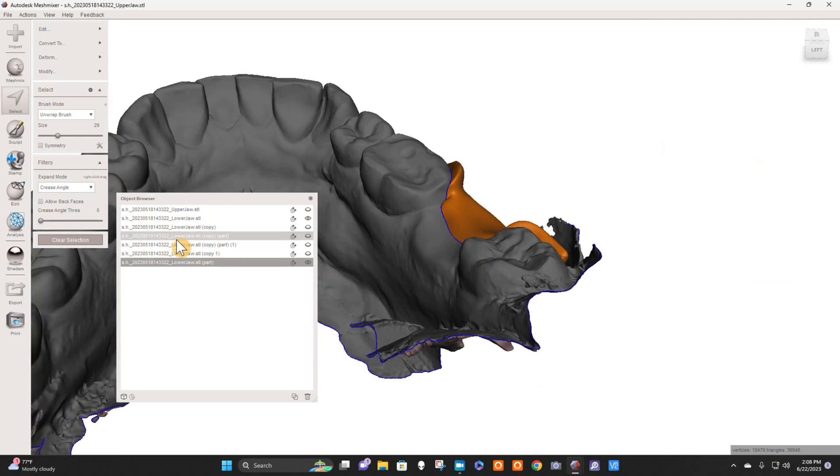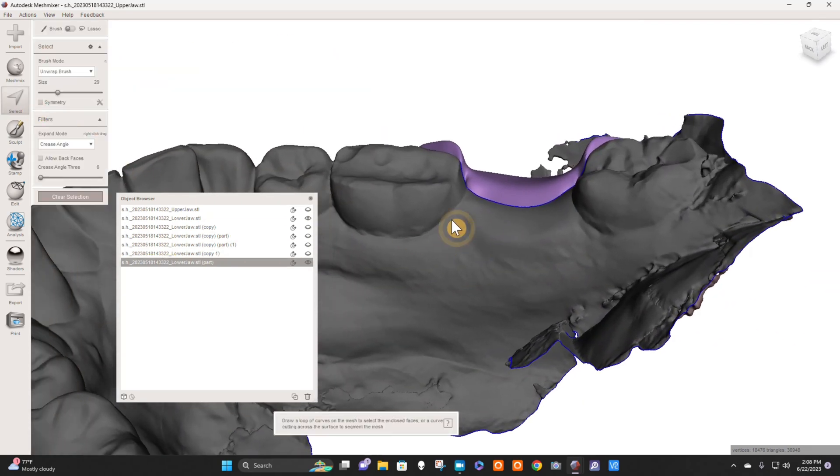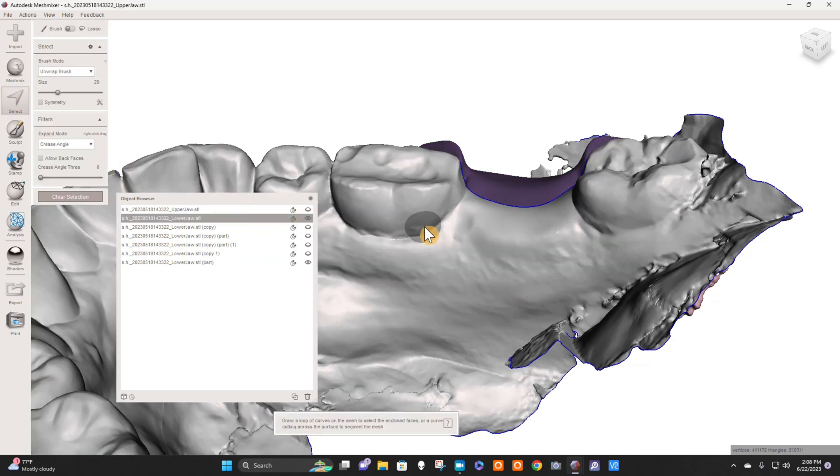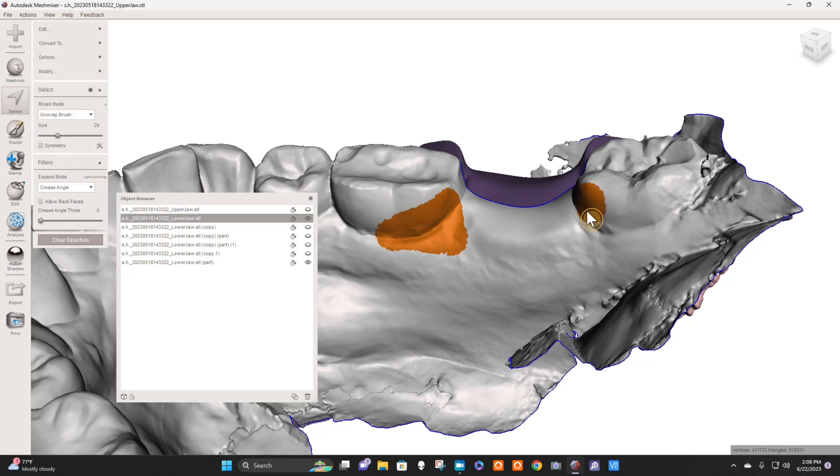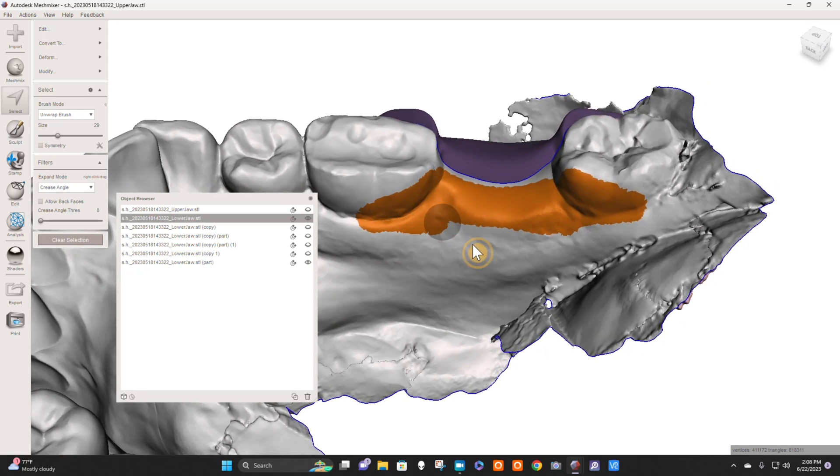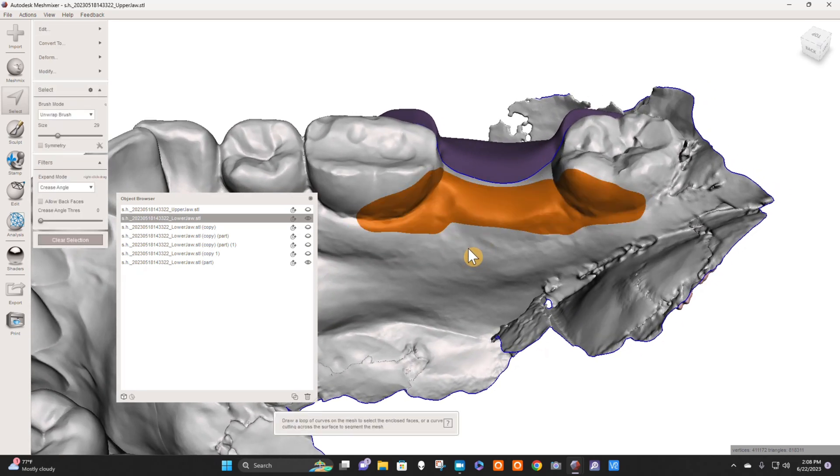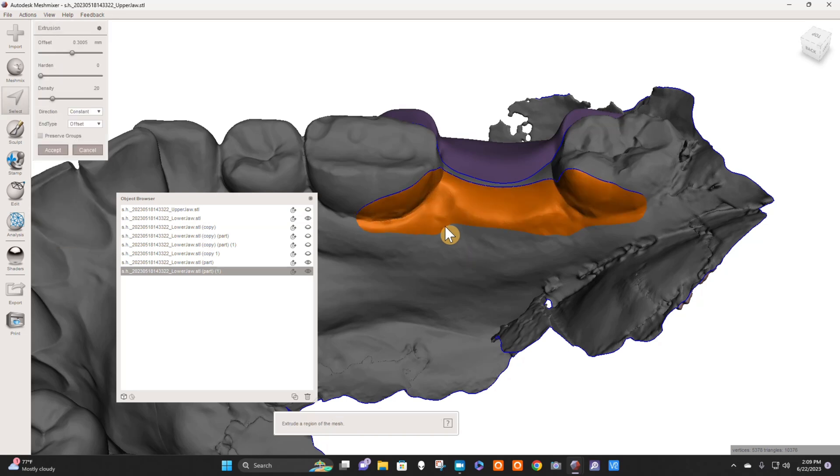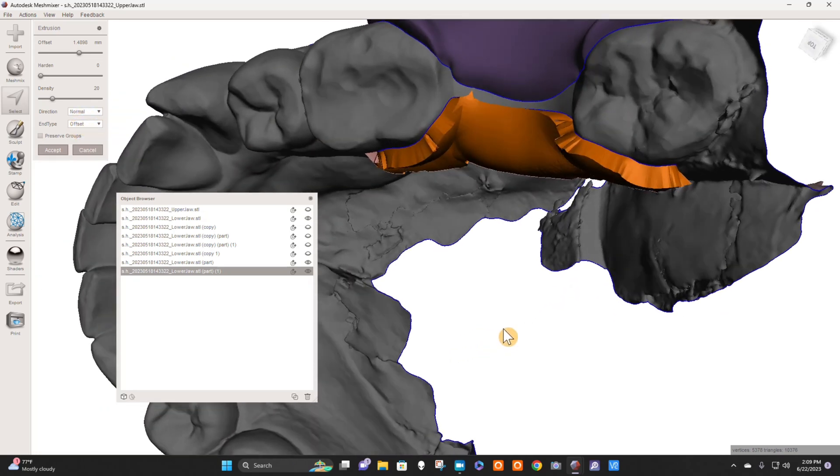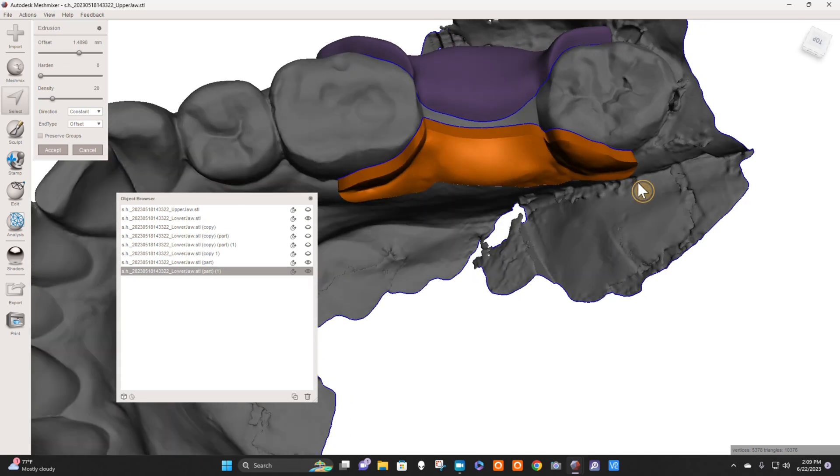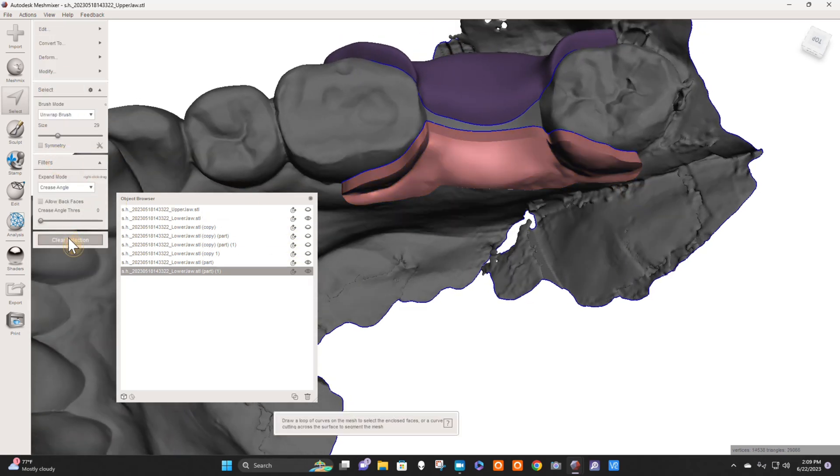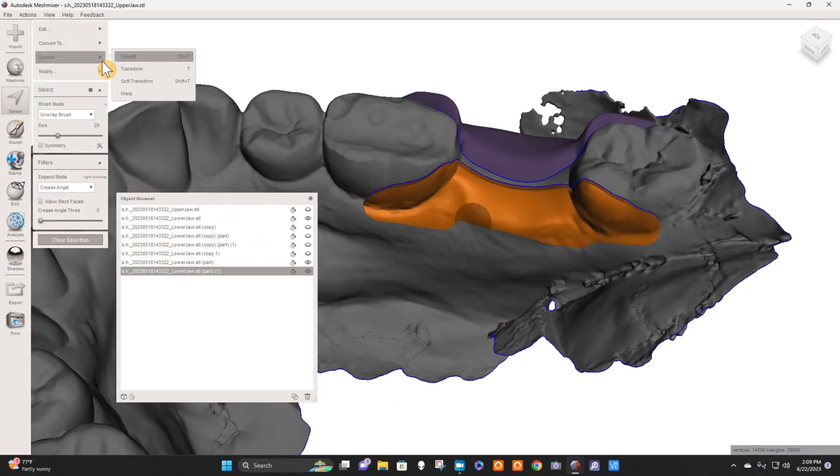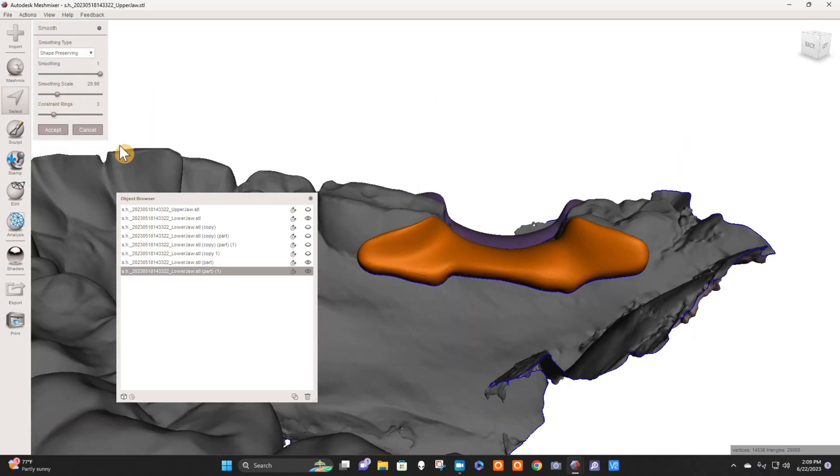Then I would clear that. I'd do the same thing on the lingual. I like to split it up this way because of the way that the extrusion works. I'll show you what I mean. So shark fin really wide at the base and then pointy, do a little shark fin here really wide at the base, pointy, and a little connector here, maybe something like that. B as in boy, Enter, Y as in yellow, Ctrl A, D as dog. I could do a constant extrusion when I do it this way. If I have to hit a normal extrusion, it just distorts everything like that, so I like a constant extrusion. By keeping these separate, I can do that. I'm going to hit Accept, clear selection. And now I'm going to select, double-click here, and hit Deform Smooth, and I'm going to go to the middle here. Beautiful, Accept.